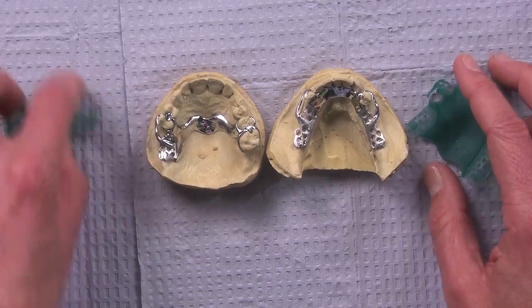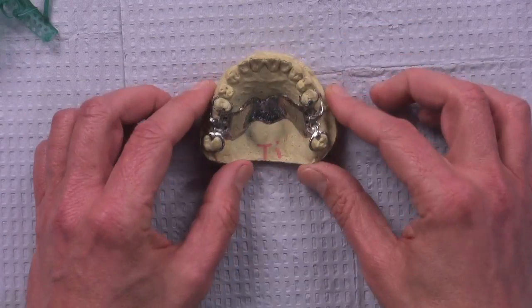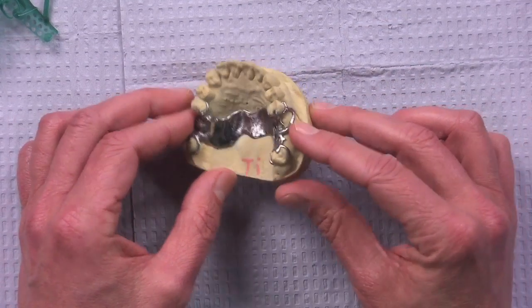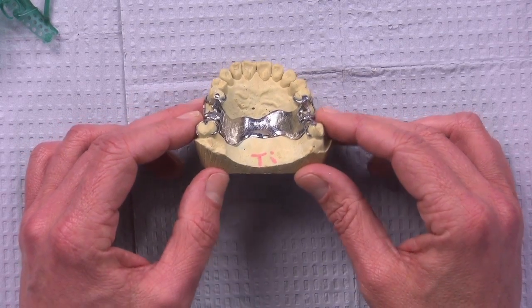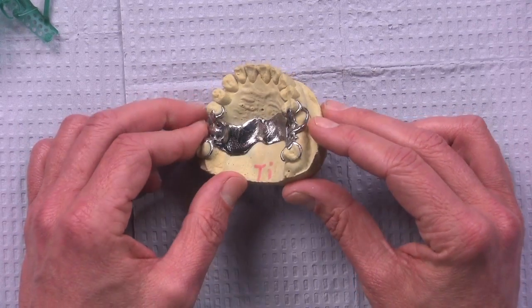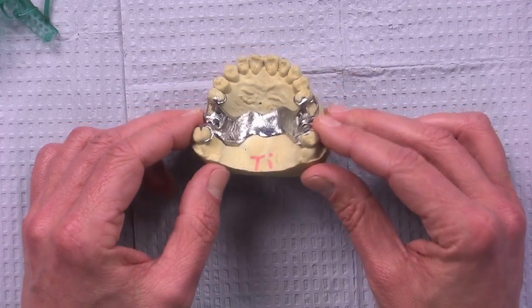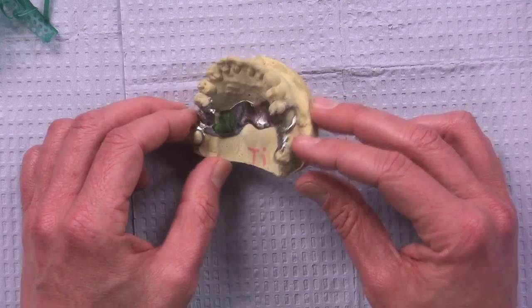And it's interesting, as part of designing that in CAD-CAM, there was one other type of denture that I happened to see that I didn't even know we were still making, to be honest. And this is a titanium partial. And so this is also cast as well. This happens to be another one of those CAD-CAM cases. Again, we get a denser casting. The titanium is hard to cast. So when we do it with CAD-CAM, we get a denser casting and a better polish afterwards.